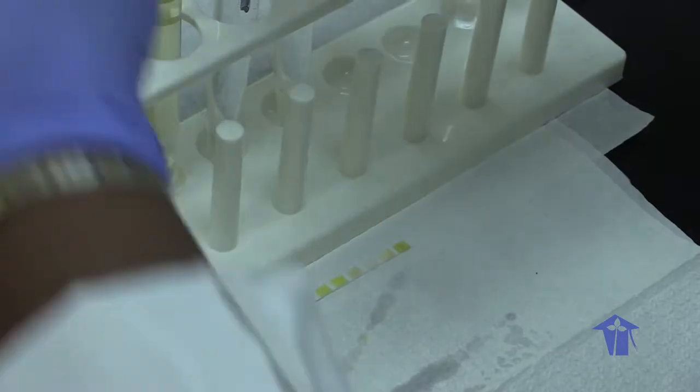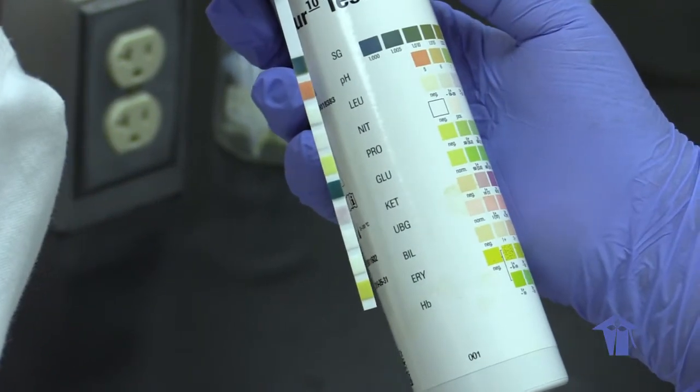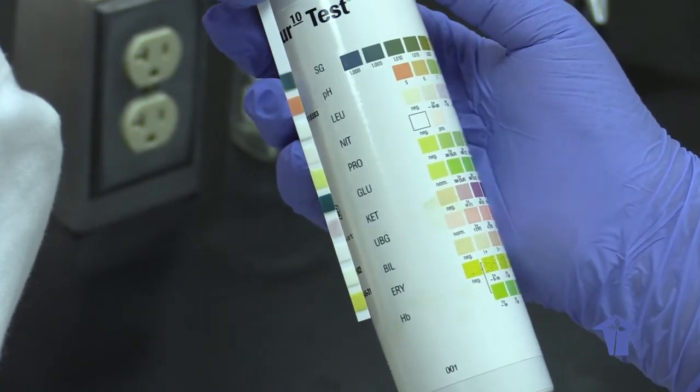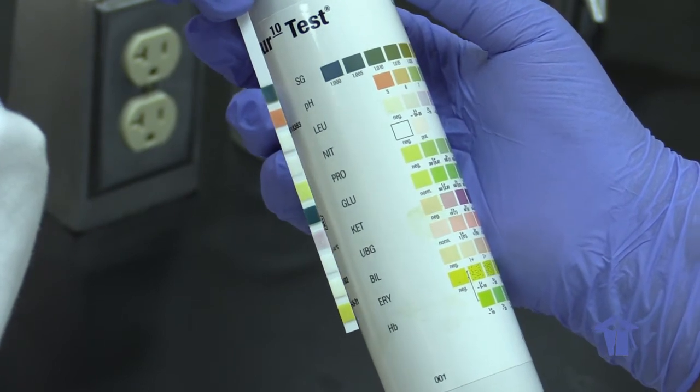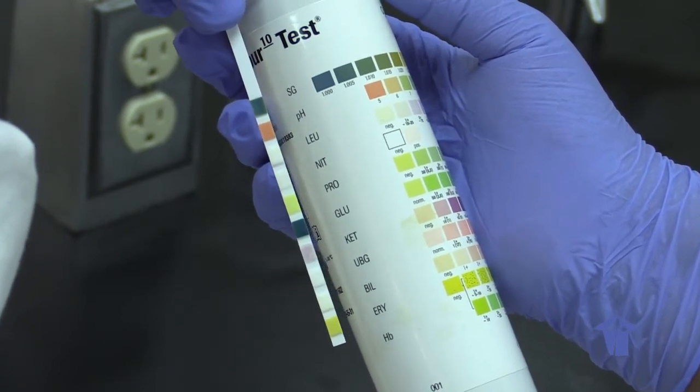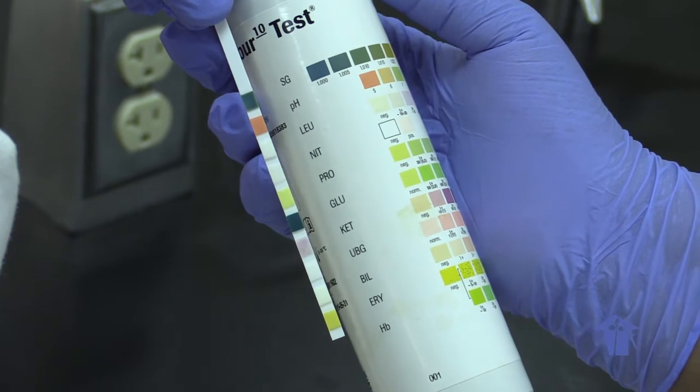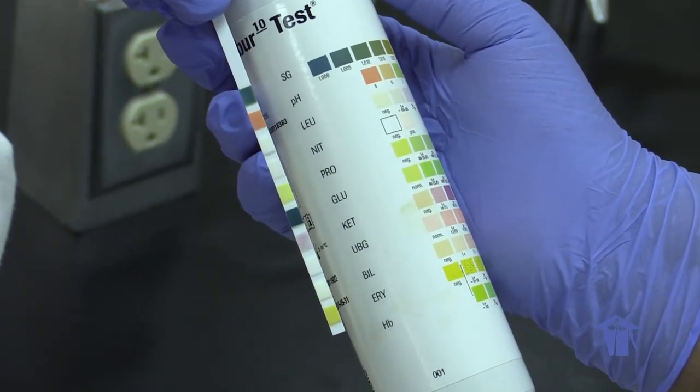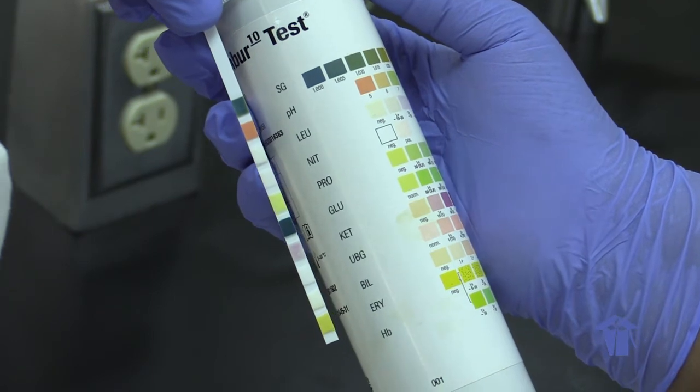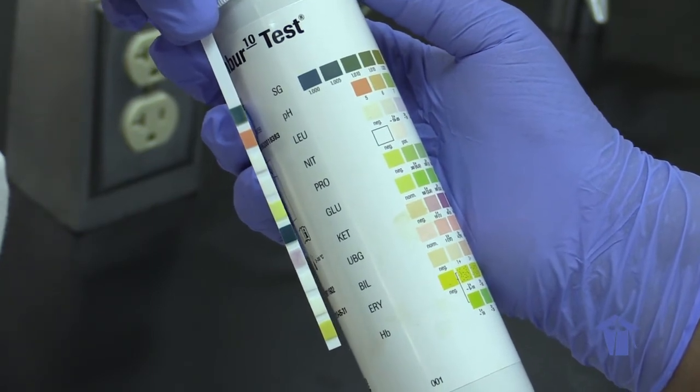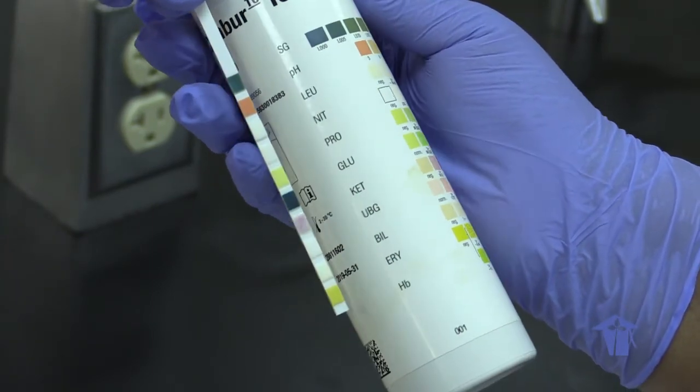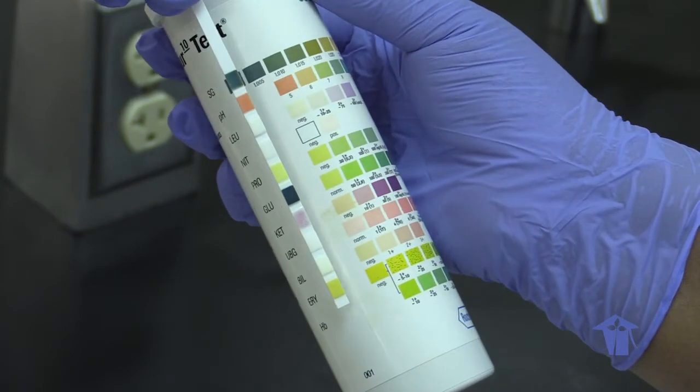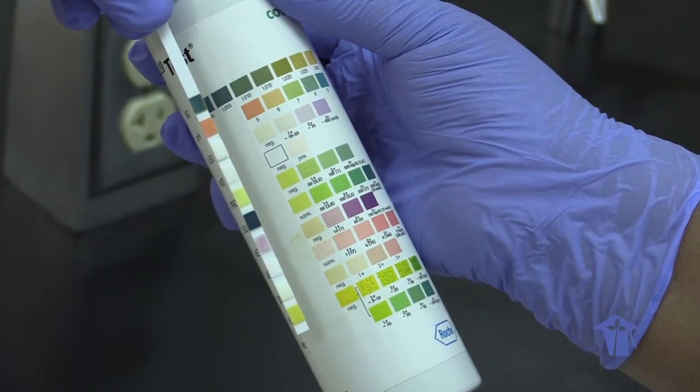What's the other urine? Testing the second sample. Leukocytes, negative. Nitrite, negative. Protein, negative. But your glucose, it's about 4 plus glucose.